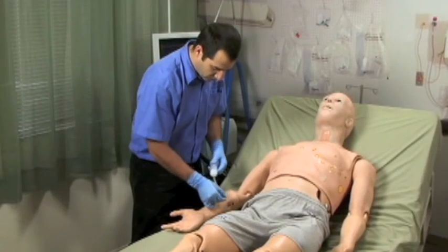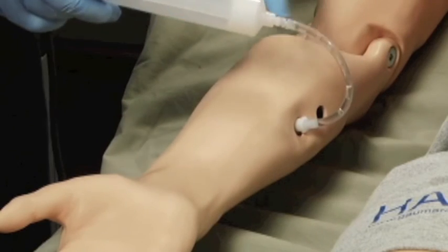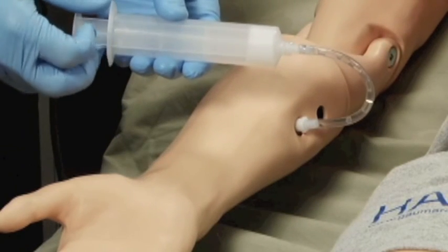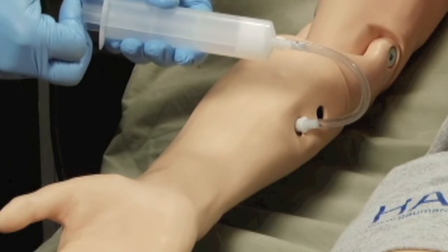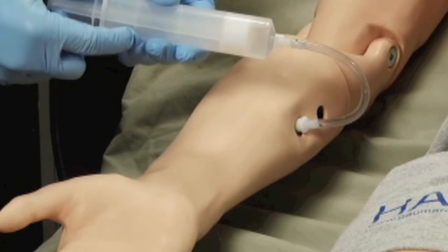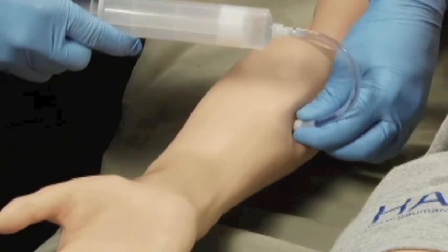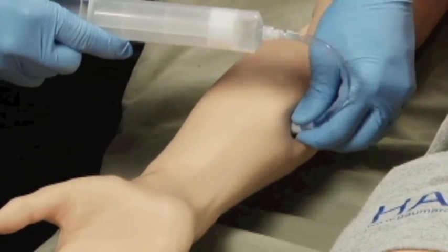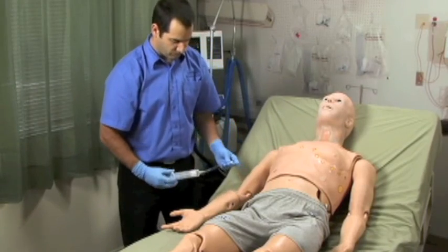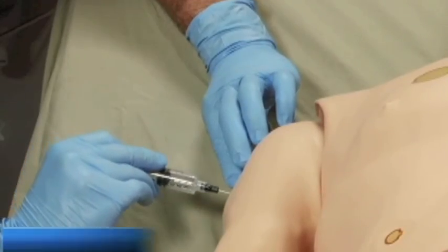Note: to simulate a patient with no accessible peripheral IV sites, connect only the syringe and pull the plunger to create suction, which will collapse the veins. Then disconnect the syringe tube from the arm port while maintaining suction. The port will seal, and the veins will remain collapsed.